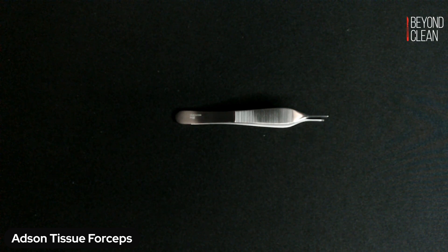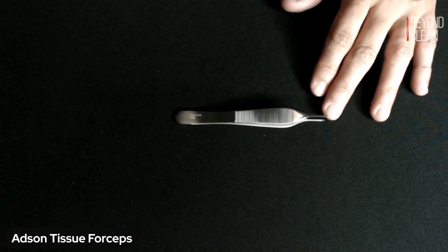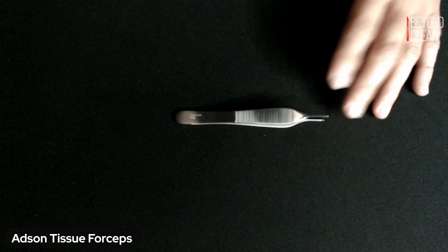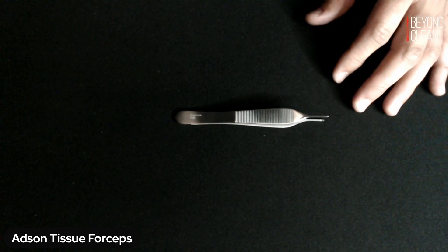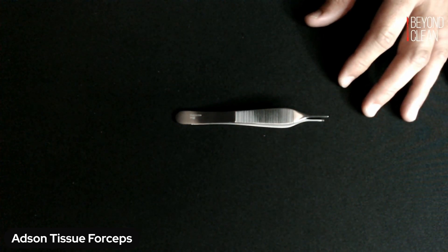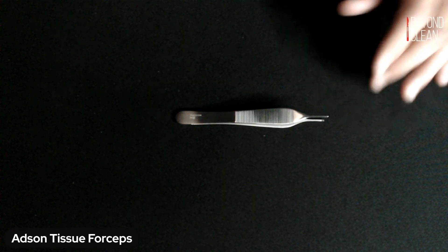And be careful in loading it into your tray. You don't want this device under any heavy instruments. There are folks out there that will put tip protectors on there, and we see oftentimes that folks will put them in paper sterilization bags or in custom trays to protect those tips.